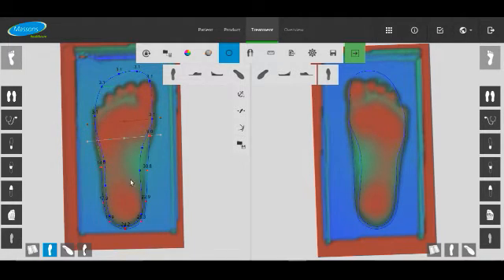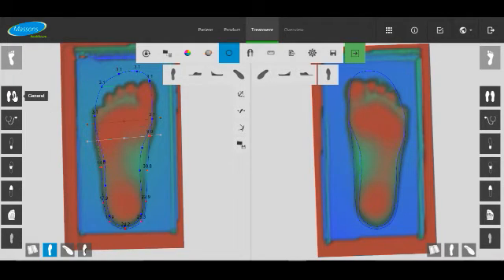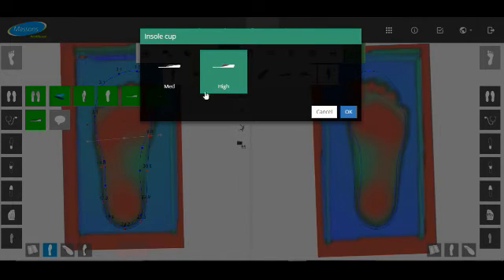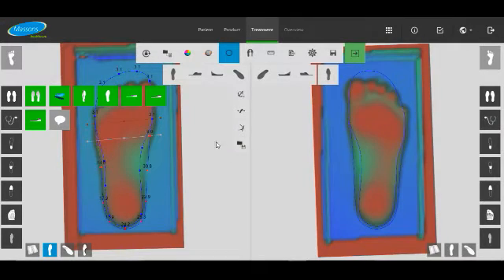We also might check the heel cup height as well. We generally like to have it high. But we can also change it manually, which I think we'll do. It's all good.